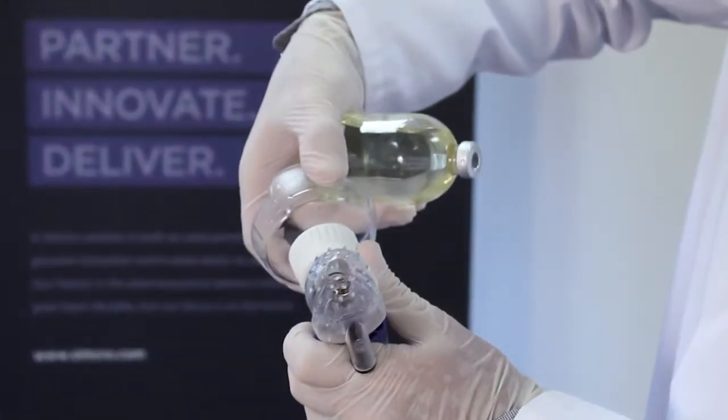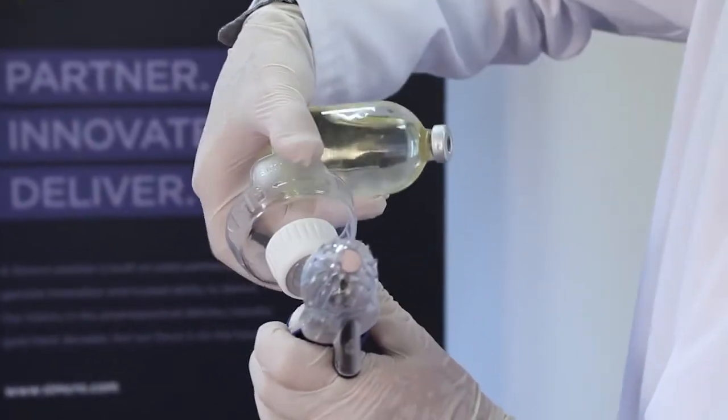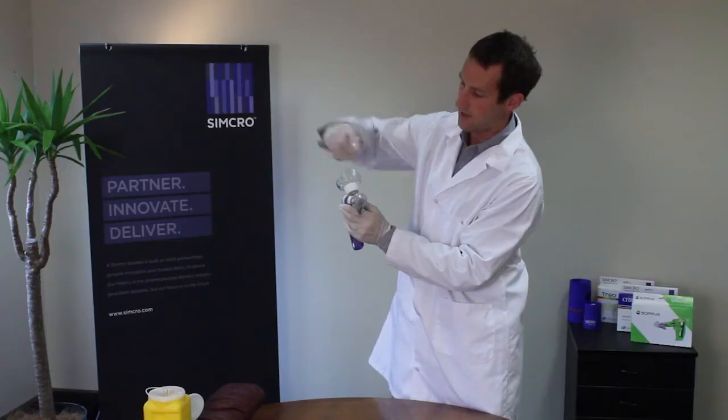We're going to stick this into the bottle mount fixture, which is what we call a quick attach. The first thing we do is make sure that's in the unlocked position, which it is. You see it clicks to lock and to unlock — clearly labelled there.